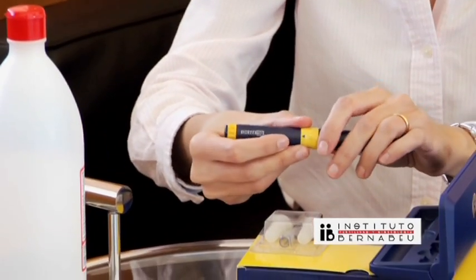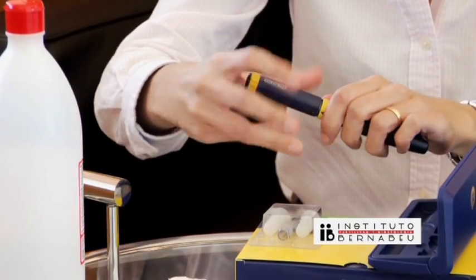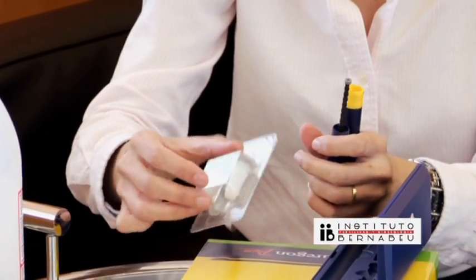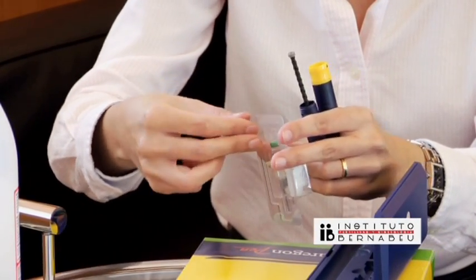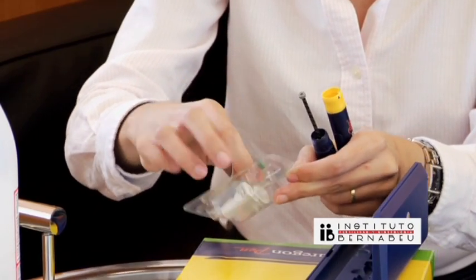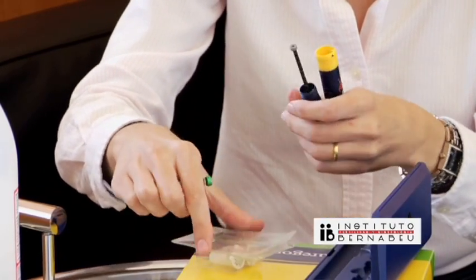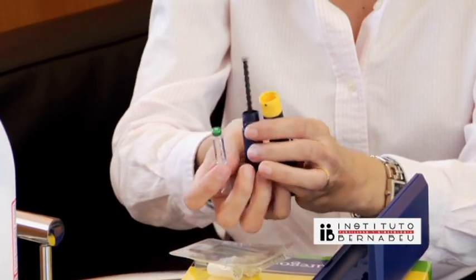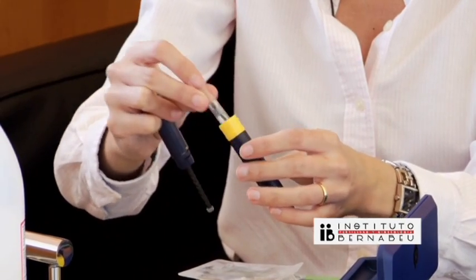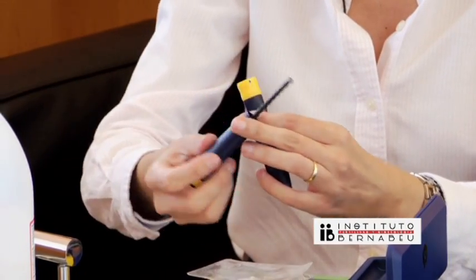To prepare for your injection, you have to screw open the pen and then take the medication vial out of its cartridge. Then put the vial into the yellow part of the pen, with the metal end going in first so that the upper part of the pen can push out the medication.